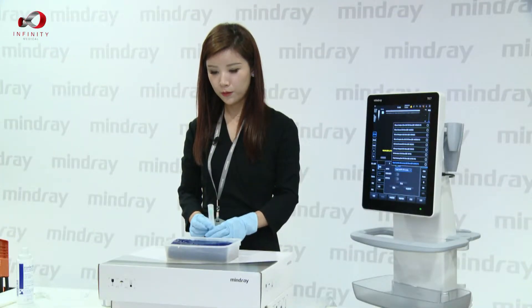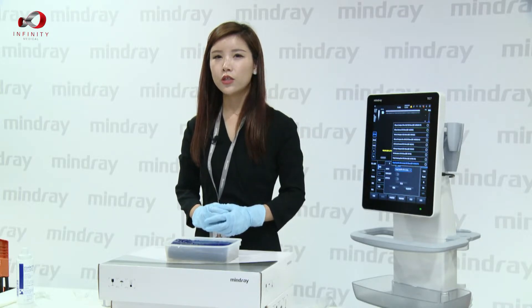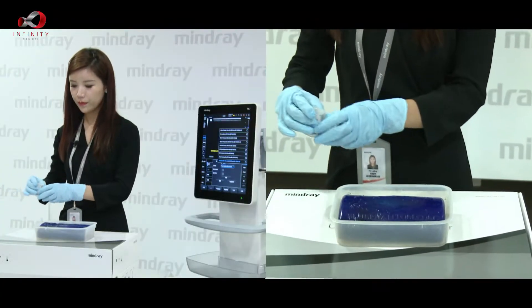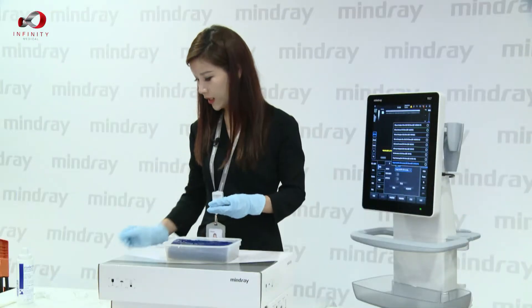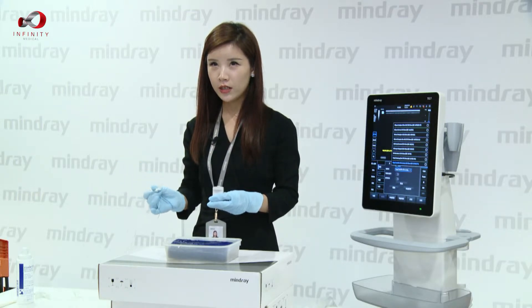This is a good example. To correctly magnetize the needle, we need to use the one-motion method — simply put our needle in and pull it out from the magnetizer.